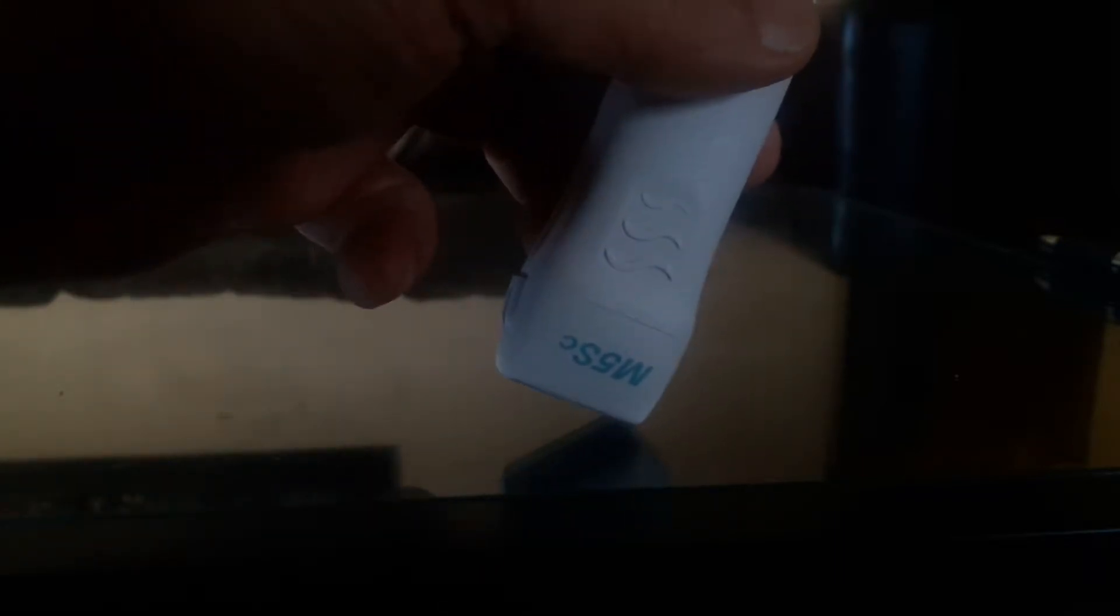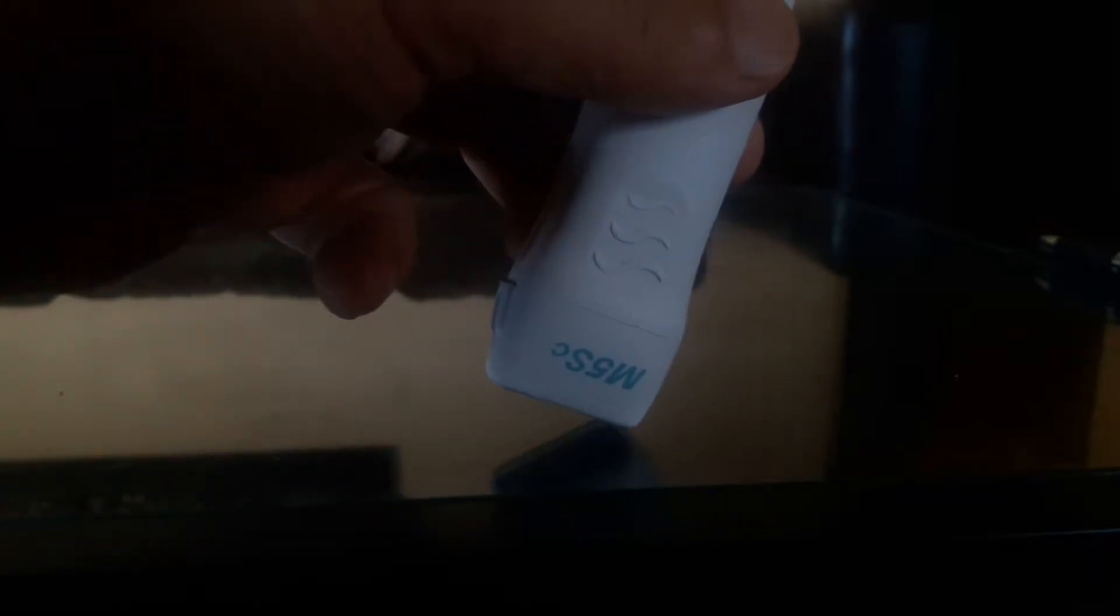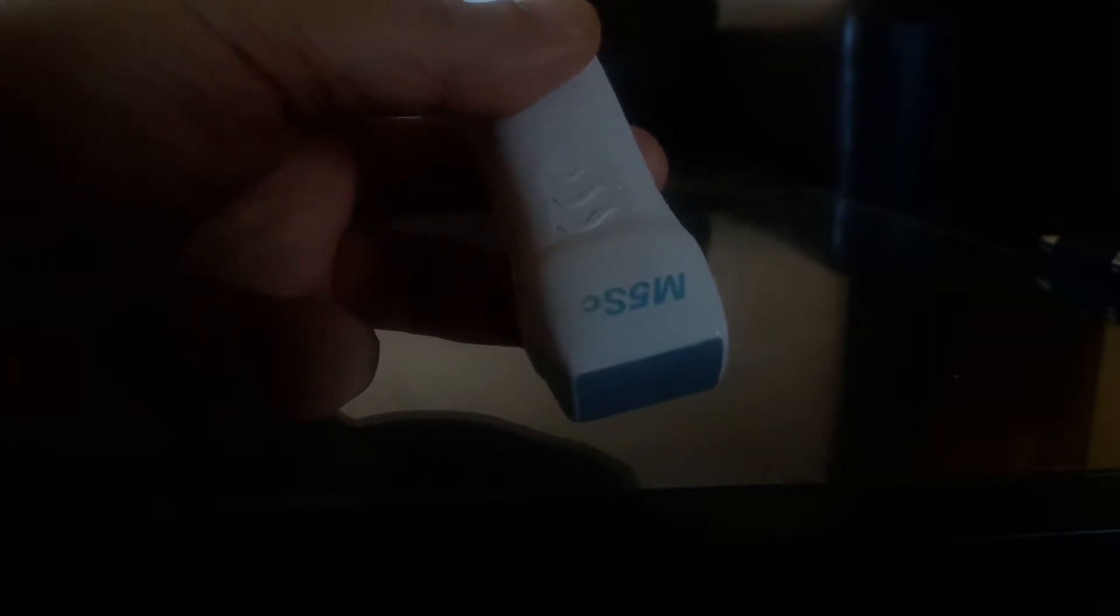If we tilt the probe along the long axis of the footprint, we call it heel-toe. Toe is the side of the marker and the other side is heel. It's like a ballet dance - you go to the toe or heel. If I tilt to the marker, it is toeing, and the other way is heeling. Heel-toe or rocking - another name is rocking, but heel-toe is more accurate because you see when you are getting that image, you know I am doing heeling or toeing.